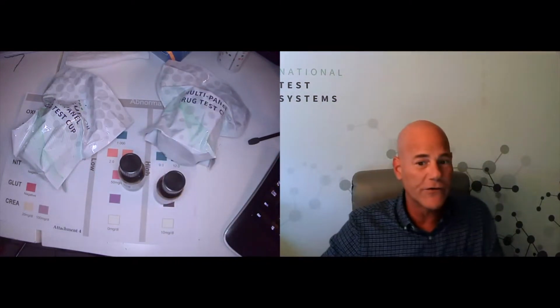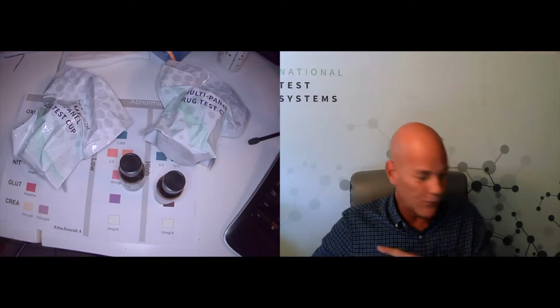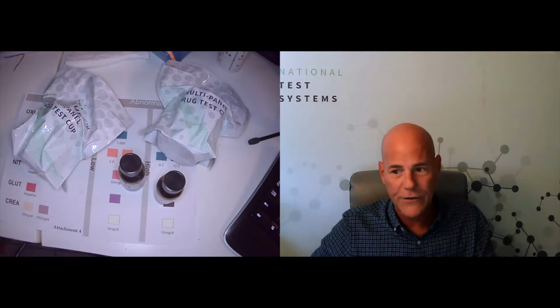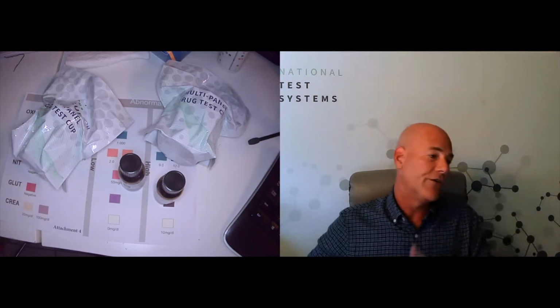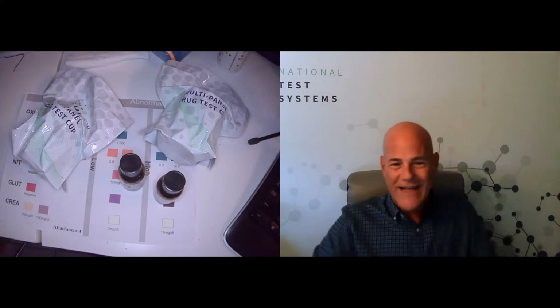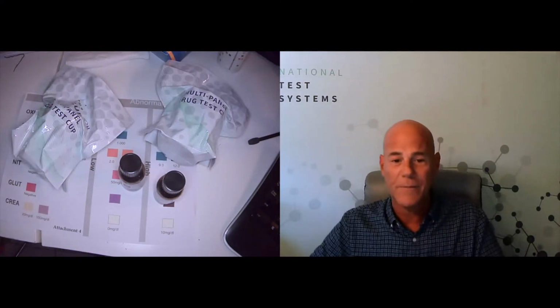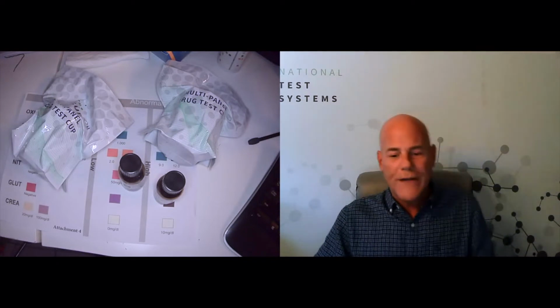They have them for the drugs of abuse test, where you would use the positive on one of the cups and you would see all the strips come out positive. You would use a negative on another cup and see all the strips come out negative, in a perfect world, because we know exactly what they put into these controls. So we know what to expect from the results. That's similar to what we have here today.